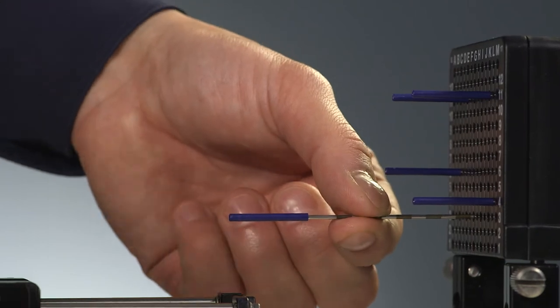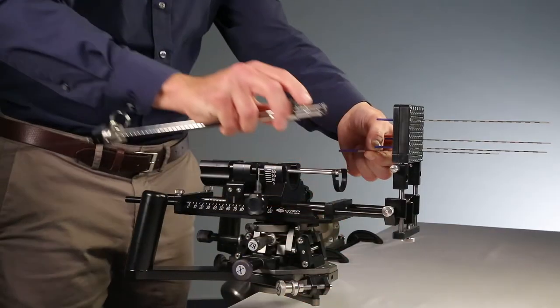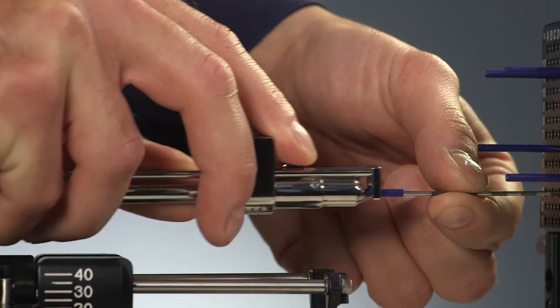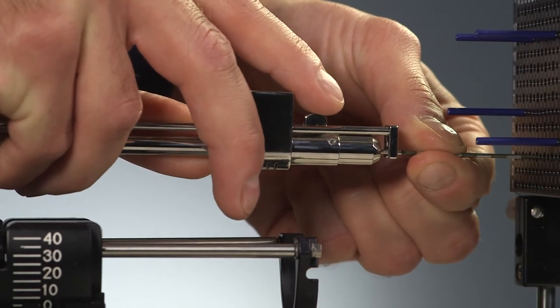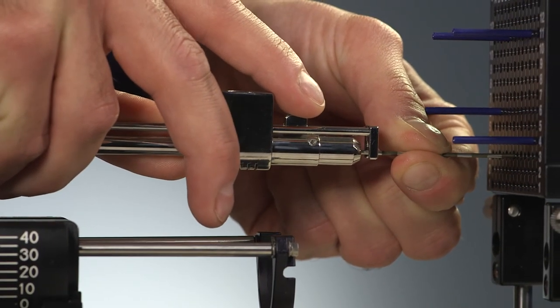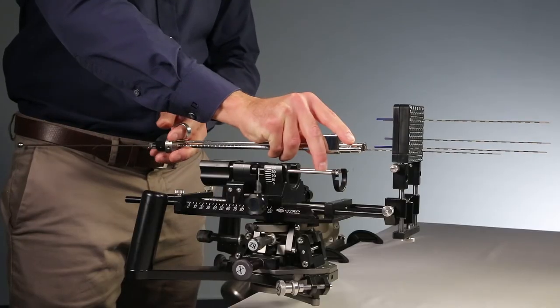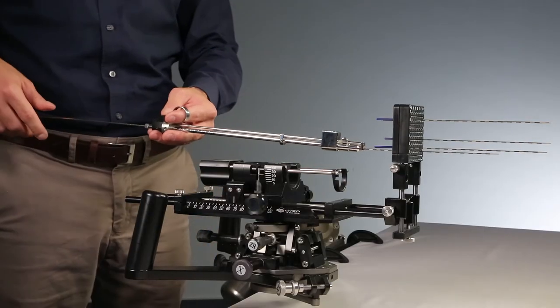Hold the needle with your fingers while attaching the applicator to the needle. You need to ensure that the needle is attached firmly by conducting a pull test. If not fully engaged, the needle will slip back out of the needle receptor.